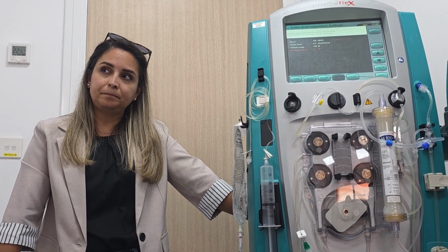So it would be better that even from the start you follow the protocol as it is. You have to keep it at 130 from the beginning, because in our setting, it is very easy to be distracted. You are going to start this one, and then you will help another staff, and then you will be entangled there, so you will forget. So better from the start itself, go with the protocol.